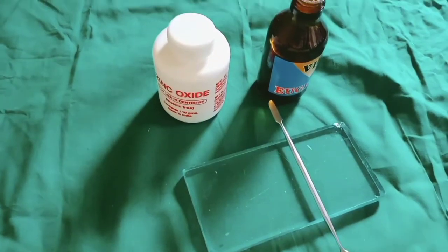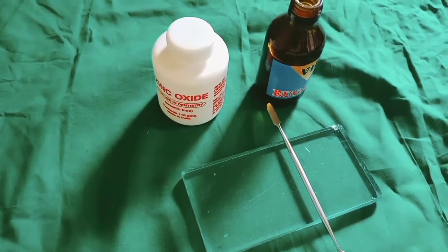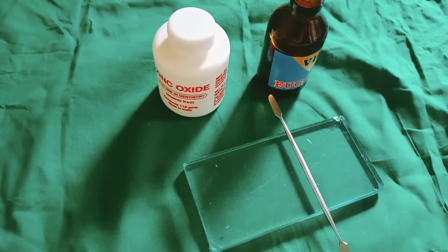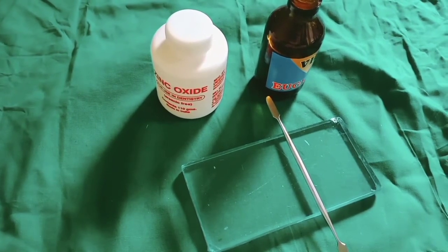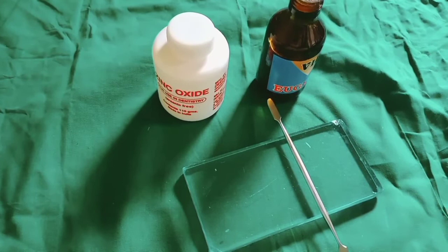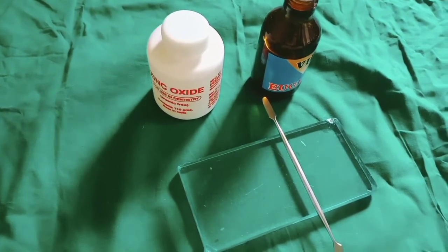Zinc oxide eugenol is commonly used as a temporary filling material. It is also used during temporary placement of crowns, as well as intermediate during oral surgical procedures.